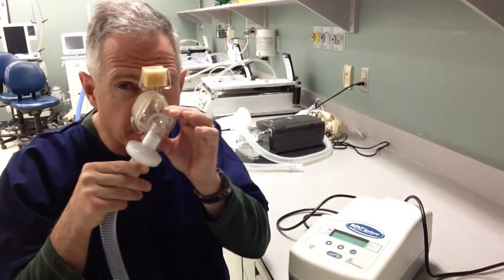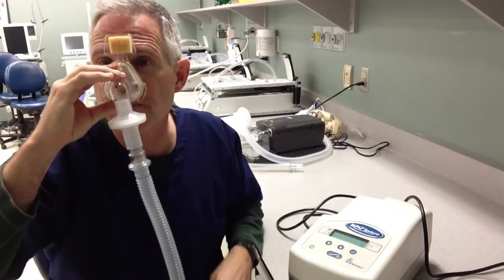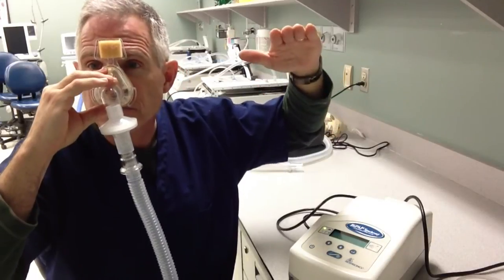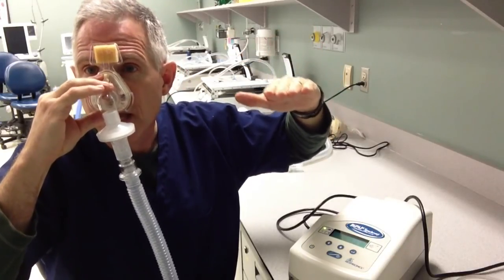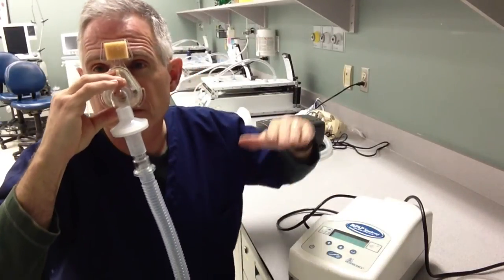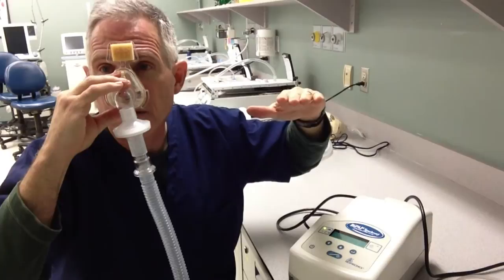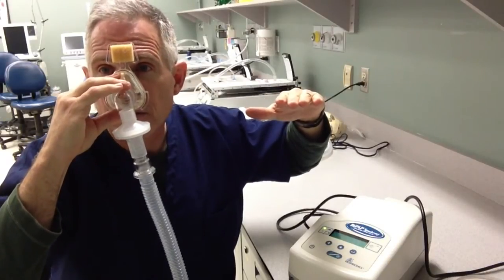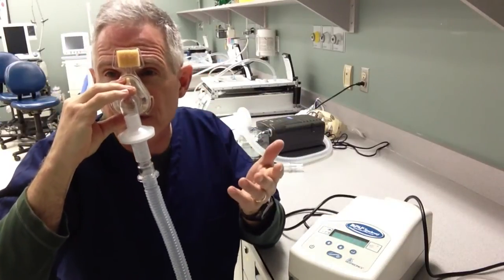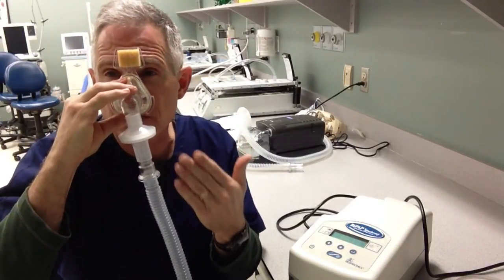Once it's on, we simply apply the mask — we can use different headgear. As I'm breathing in, the ventilator is raising the inspiratory pressure to whatever I have set. And then when I am exhaling, it's delivering that EPAP pressure, or the exhale positive airway pressure, or PEEP levels. Even with my mouth open it works quite effectively. It can be unnerving for the patient because they'll get this continuous gas flow coming out of their nose and mouth, so usually the patient will keep their mouth closed.